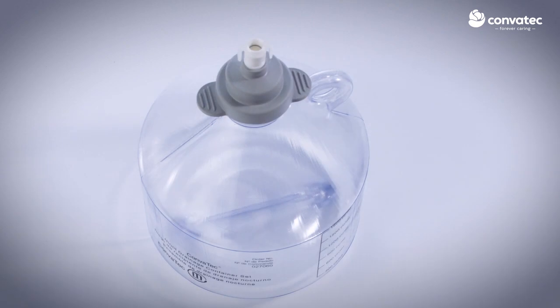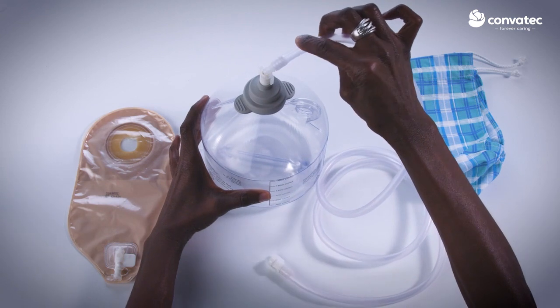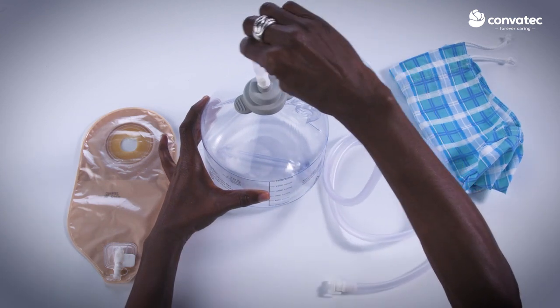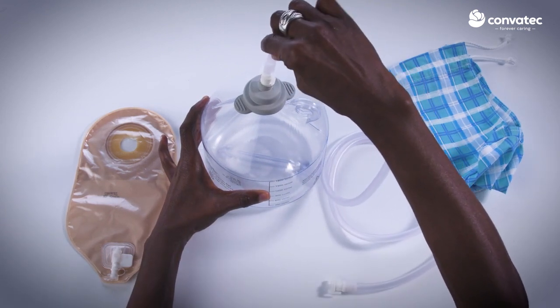Connect the male end of tubing, which is the end without the clips, to the outlet on the cap of the container. Press firmly until you hear a click.